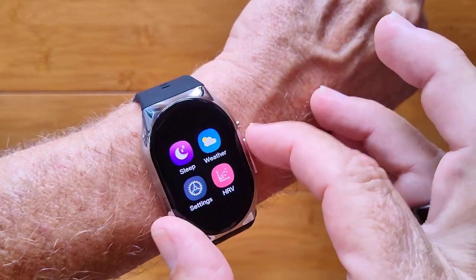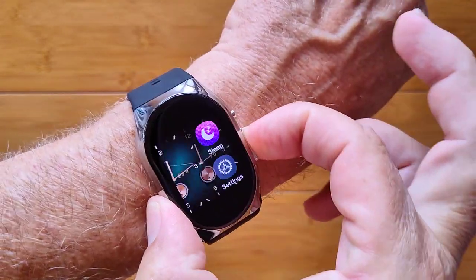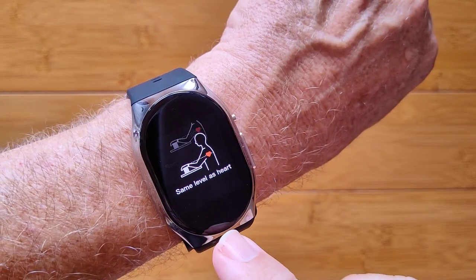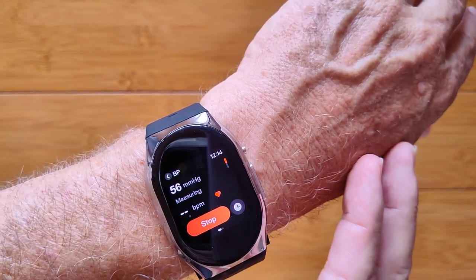All of that's built into this watch. It's got a few different watch faces you can choose from, and when you long press here and give it a moment, it will switch into the blood pressure reading mode when you have your arm properly supported and really relaxed.